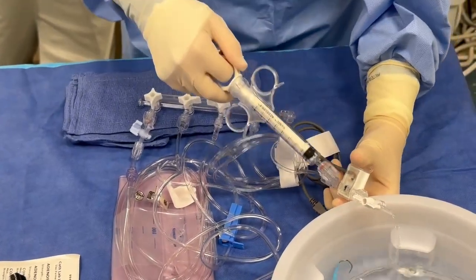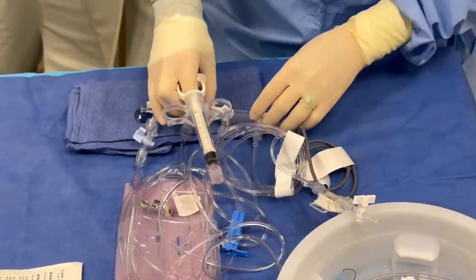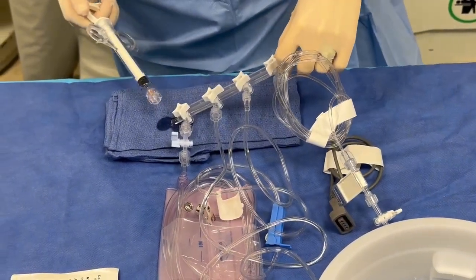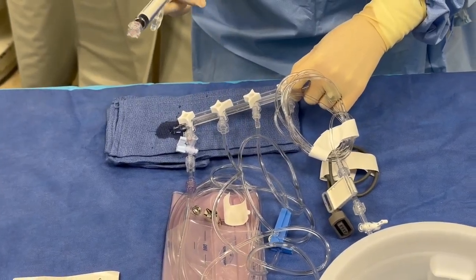Never tap on the bridge — you don't want to dislodge the transducer. Tap, tap. That's beautiful and flushed. I'm turning it off. Now guess what? Both of these lines are just flushed. The contrast is coming back. Tap, tap, tap. See those bubbles that were lodged there? You don't want bubbles.